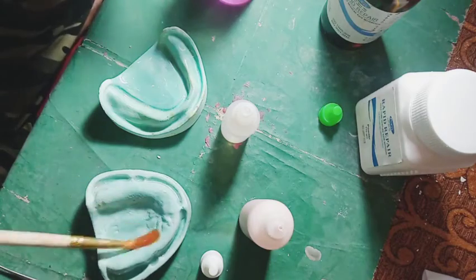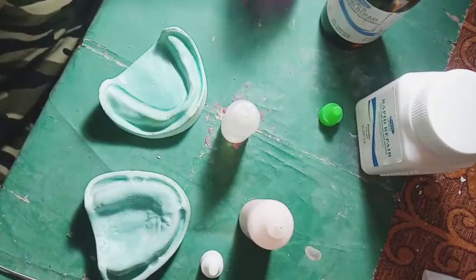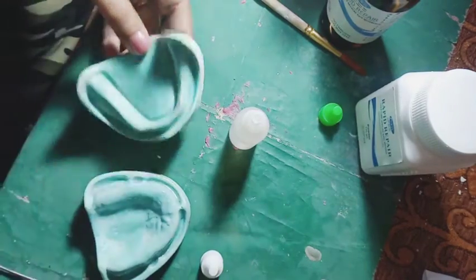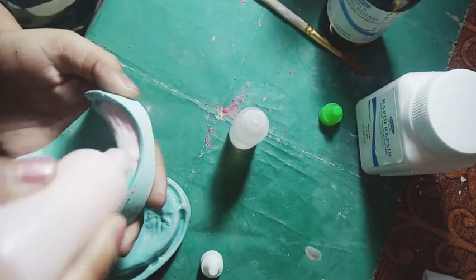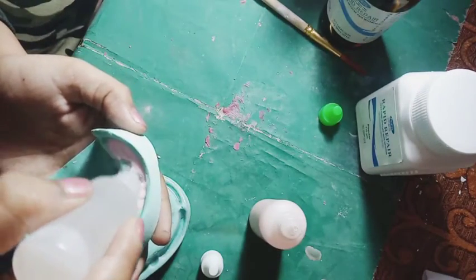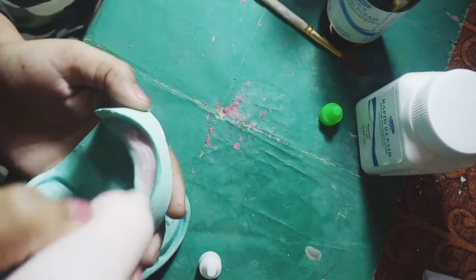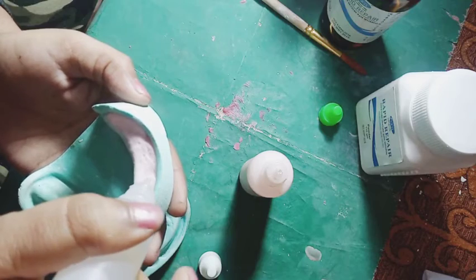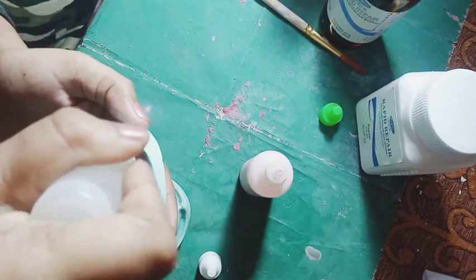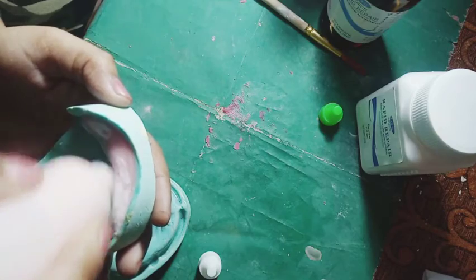All right. So let's let this dry for 2 minutes. Now this is polymer and monomer — we will put a clear layer by sprinkle technique. Look at this, first time doing it on the mandible.